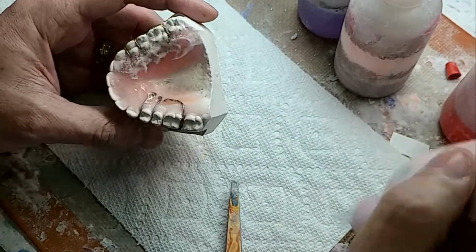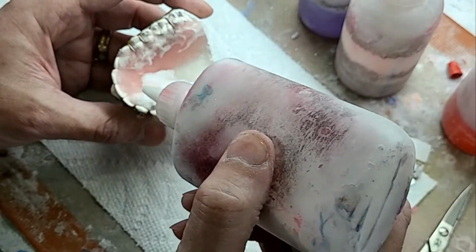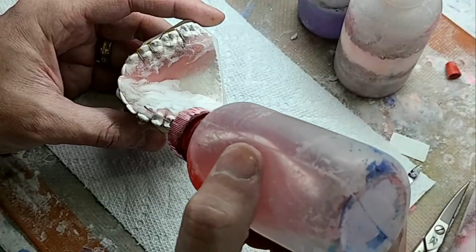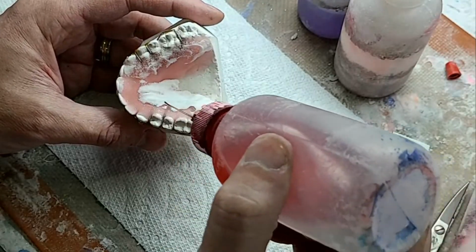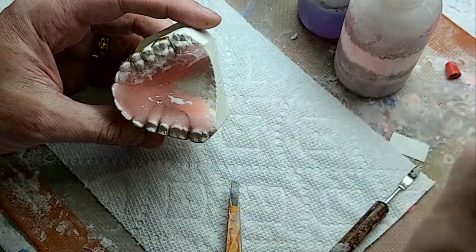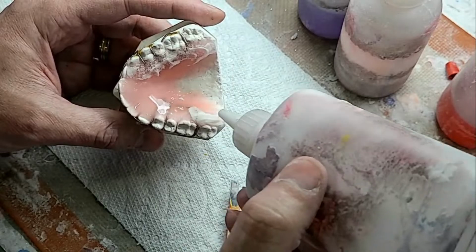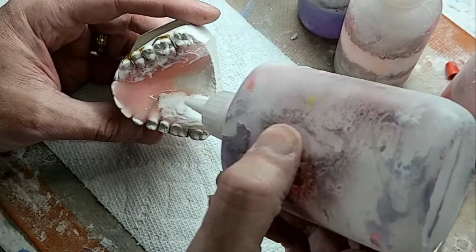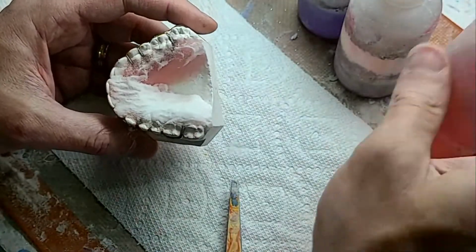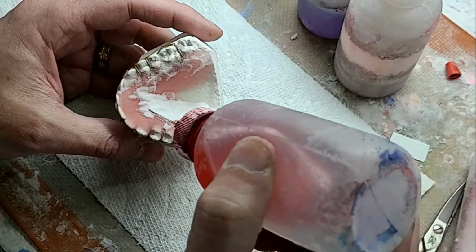So this is cold cure acrylic. It's pretty much standard in our industry. And that means it does not need heat to set up. I've also heard it called bench cure, meaning you can just put these two, the powder and liquid, together, and the reaction starts. The initiator and activator are all built into the powder and the liquid. Whereas with dentures, a lot of them are heat cured, which means it will never leave the doughy stage, which right now this is kind of in the doughy stage. But give it 10 minutes and it will set up and be hard.